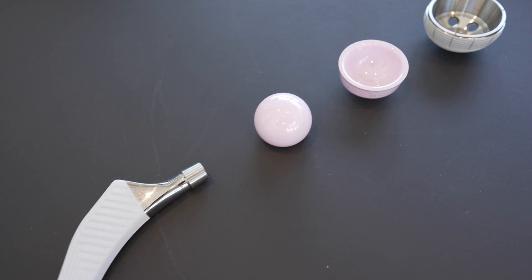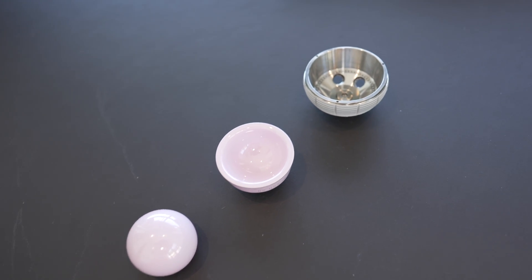The actual articulating part constitutes the ball and the liner. The ball and the liner of a hip replacement can either be made of metal, ceramic or plastic. In general, the ball is either metal or ceramic, and the liner is either metal, ceramic or plastic. The options that I utilise are a ceramic ball and either a plastic or a ceramic liner.